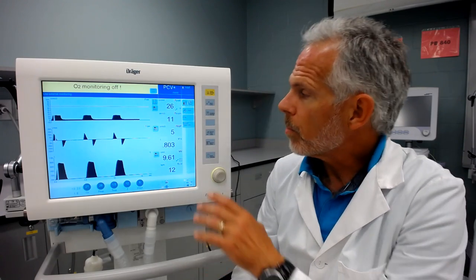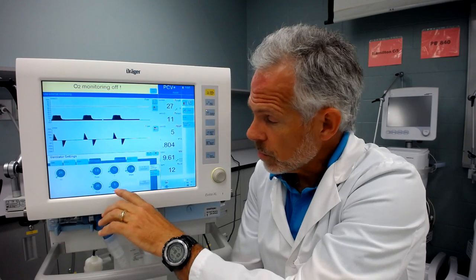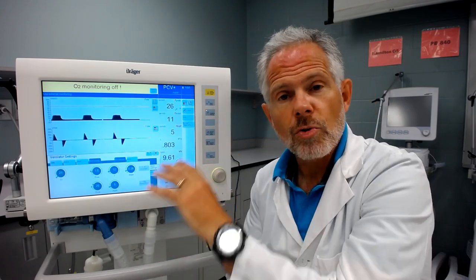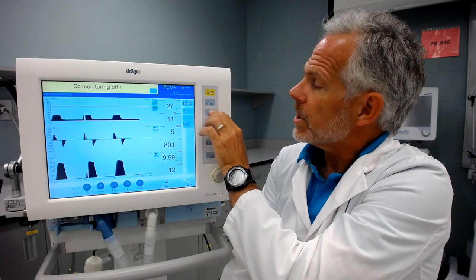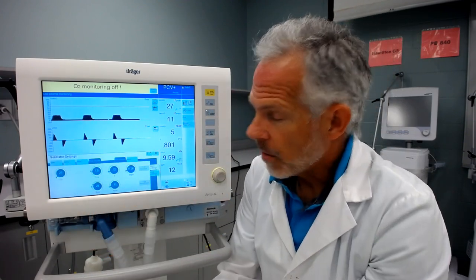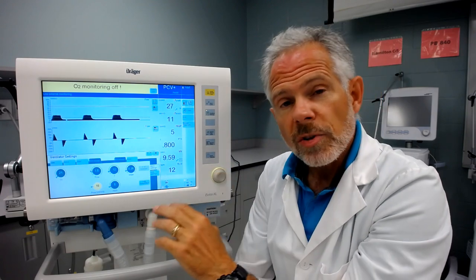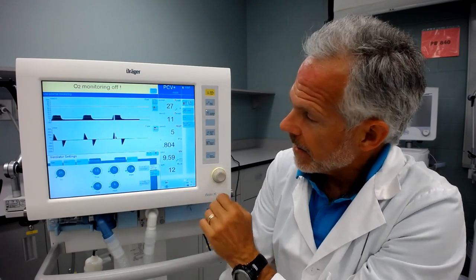In pressure control, one of our primary ways of controlling ventilation is setting up a pressure gradient between baseline and peak pressures — that gradient gives us tidal volume, and combined with rate, controls minute ventilation. When we change that pressure gradient, it also affects peak inspiratory flow. Now we're going to change the peak inspiratory pressure from 25 down to 15 centimeters of water pressure, so our delta pressure changes from 20 to only 10 — we're halving it. Let's see the effect.